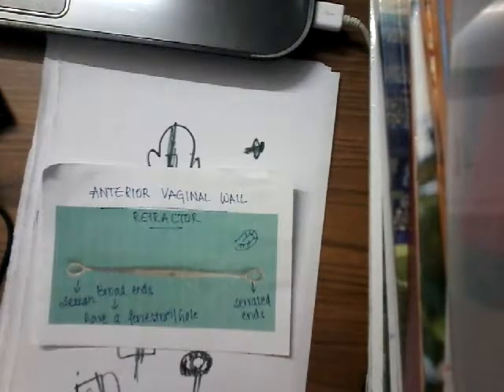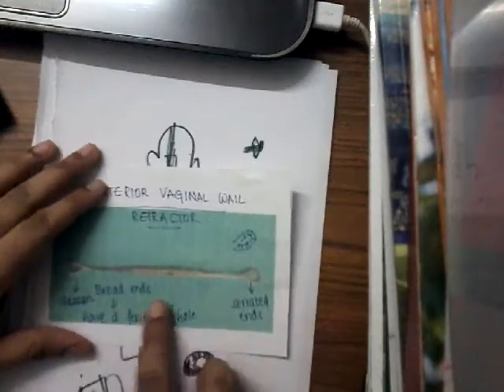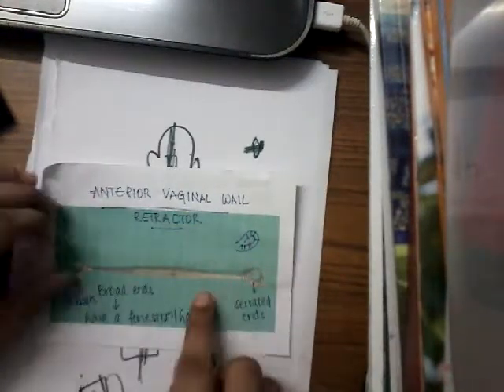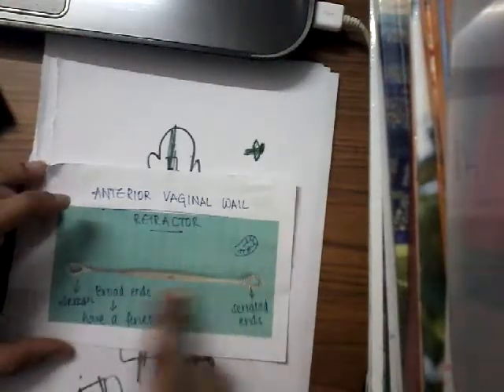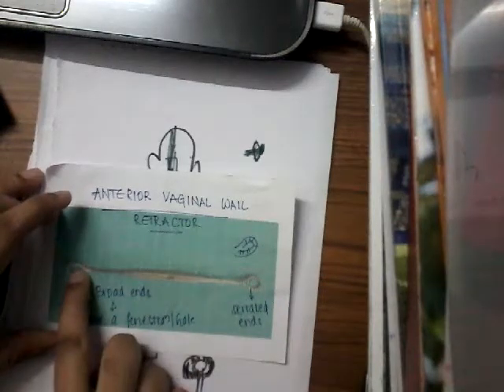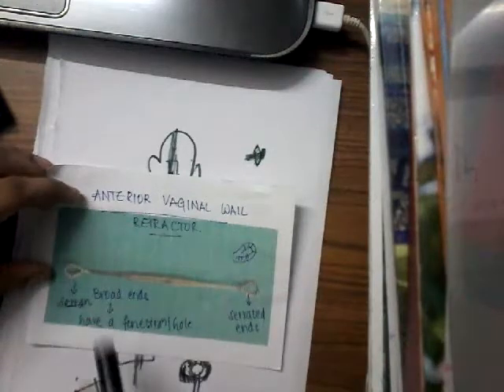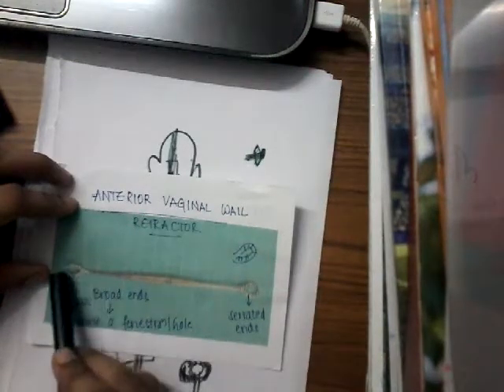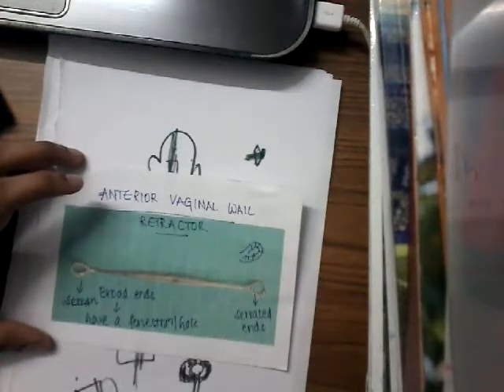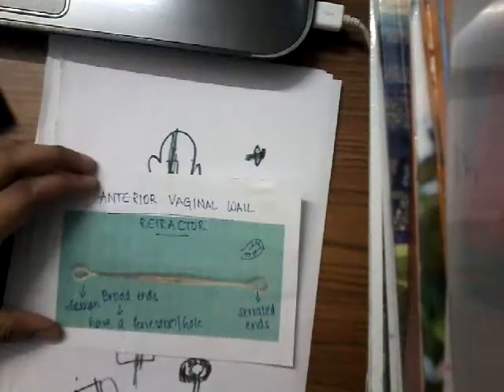This is the anterior vaginal wall retractor. It is mainly identified by the presence of a long straight rod, and on either sides it has broadened ends. In the center of the broadened end there is a fenestration hole, and the broadened ends are serrated. This is how you identify the anterior vaginal wall retractor.